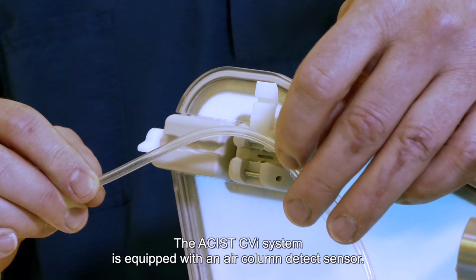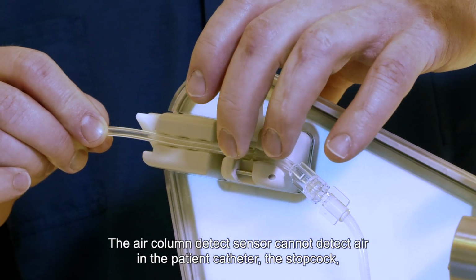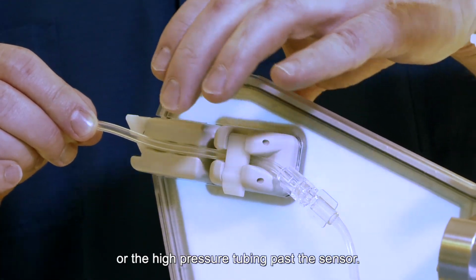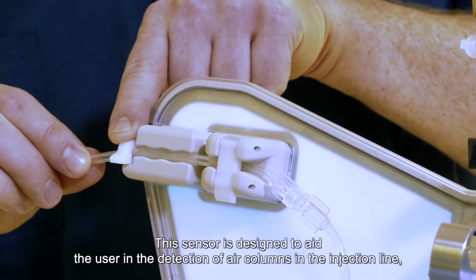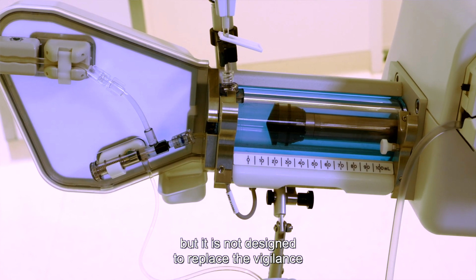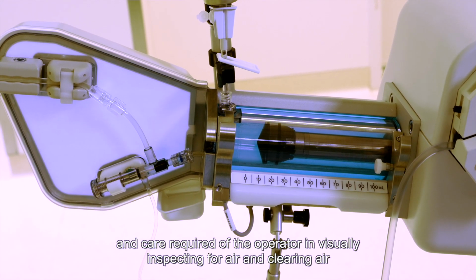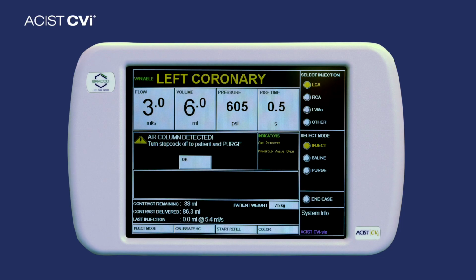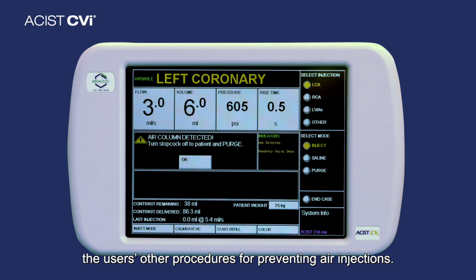The ACIST CVi system is equipped with an air column detect sensor. The air column detect sensor cannot detect air in the patient catheter, the stopcock, or the high pressure tubing past the sensor. This sensor is designed to aid the user in the detection of air columns in the injection line, but it is not designed to replace the vigilance and care required of the operator in visually inspecting for air and clearing air from the entire patient's kit and angiographic catheter. The air column detect mechanism is to be used in conjunction with and to complement the user's other procedures for preventing air injections.